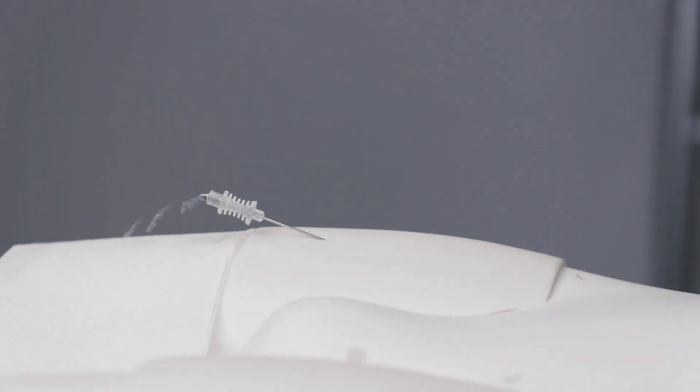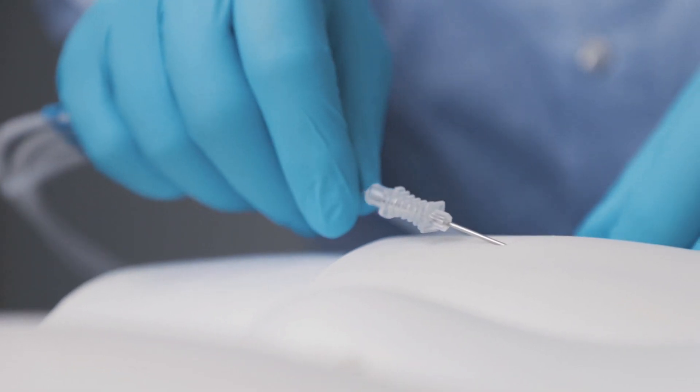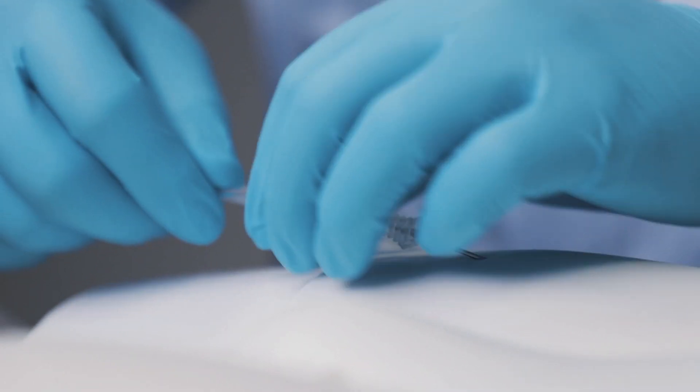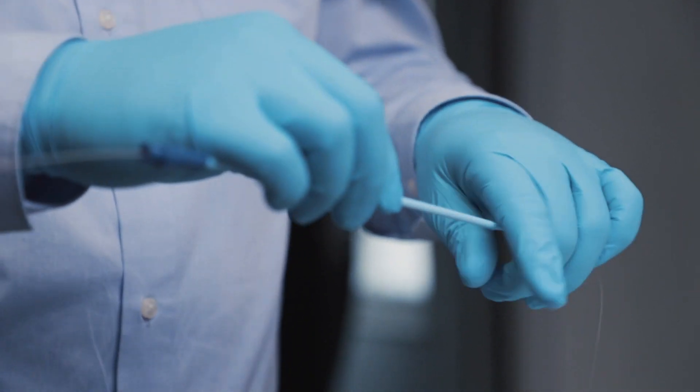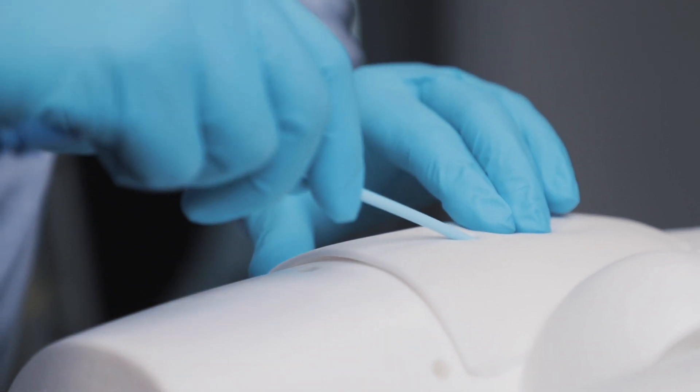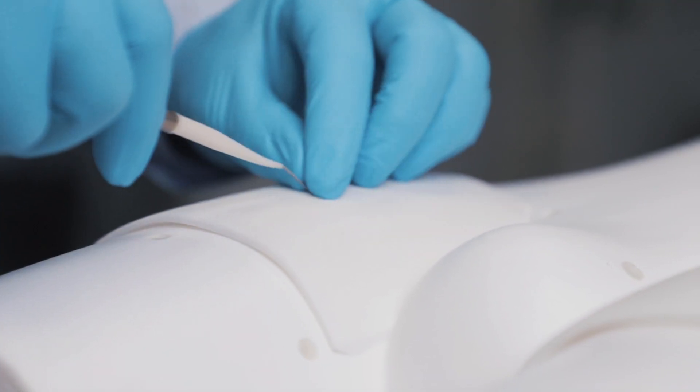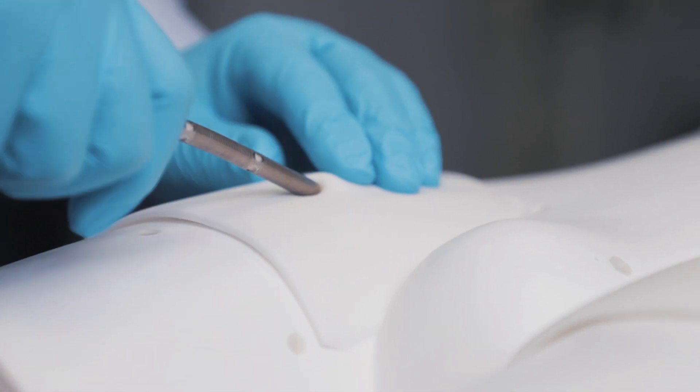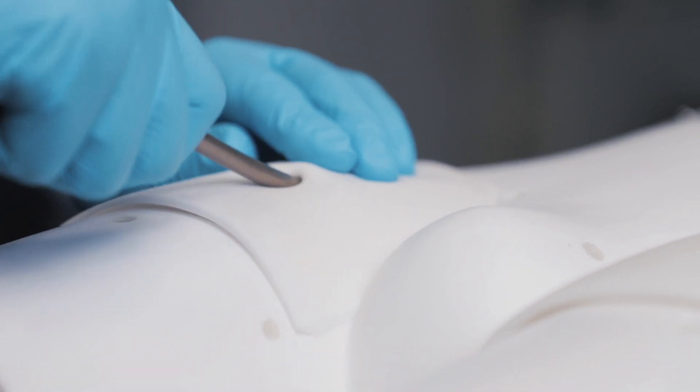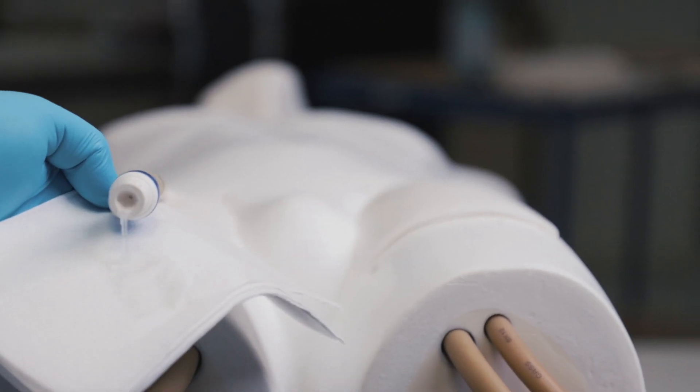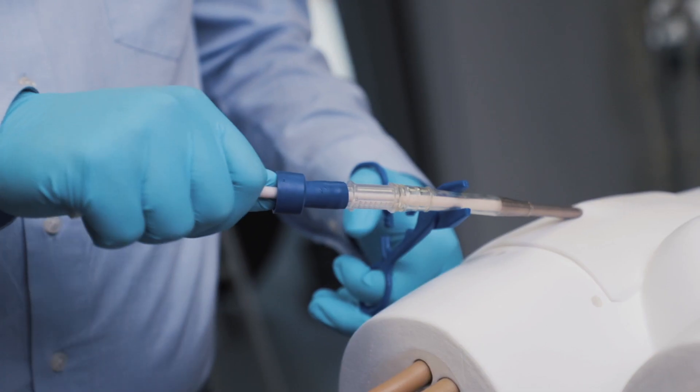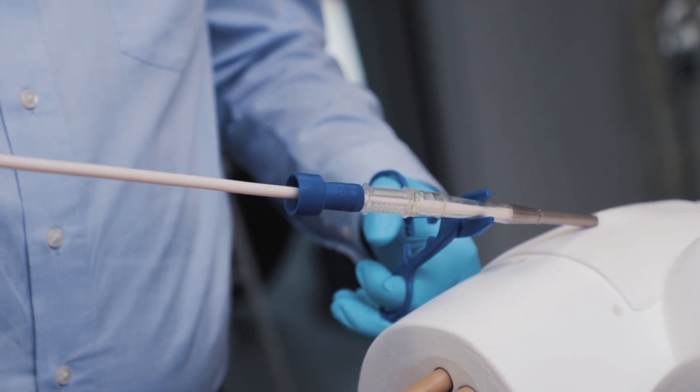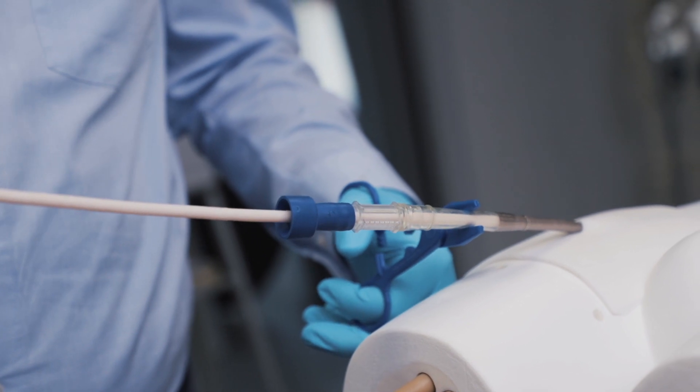All instruments like needles and guide wires can be used for simulations. Dilators can be used for correct procedure but are not really necessary to dilate the pad. You can use all common cannulas just as in a real patient scenario. The full procedure can be trained including connection and operation of an ECMO machine.